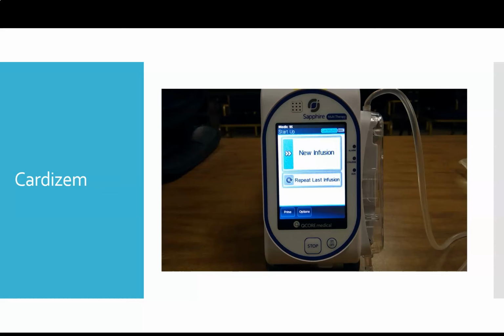So our Cardizem that we're mixing is going to be our 100 milligrams in 100 mLs. When we set this up, we need to keep in mind that we talked before about the difference between the drips and the boluses. When you're setting up Cardizem, the easiest way is to set up both your drip and your bolus at the same time.